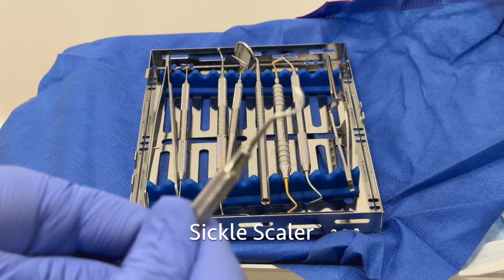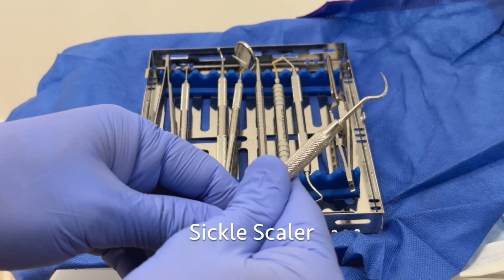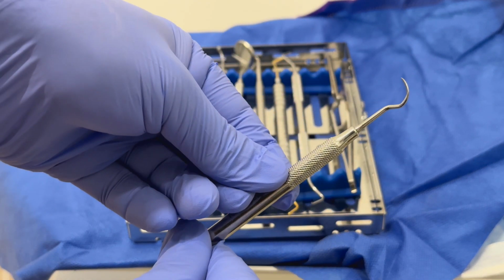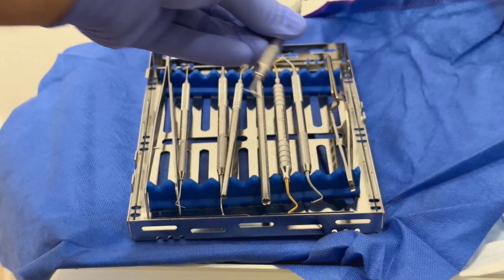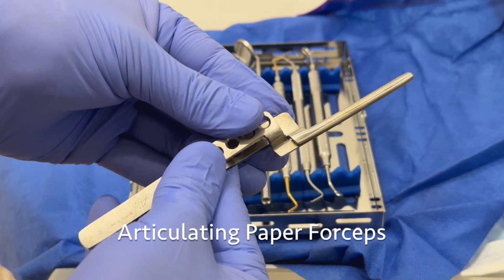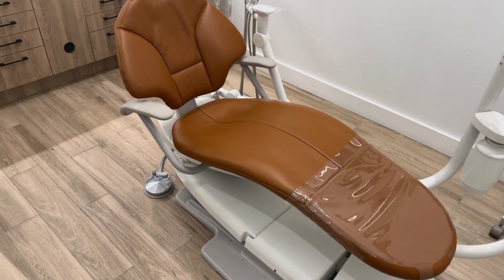And lastly, we have our sickle scaler. This is used to remove any excess flash from the restoration. Once we've placed and cured the composite resin, there tends to be sometimes some flash or some excess composite around the edges. Last, we have our articulating paper forceps. These are used to see any high spots on the restoration.